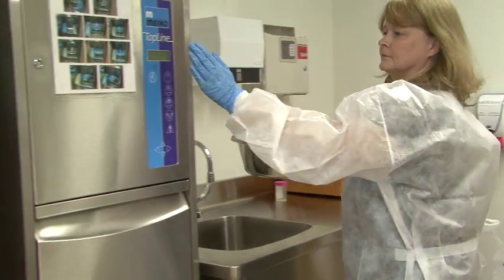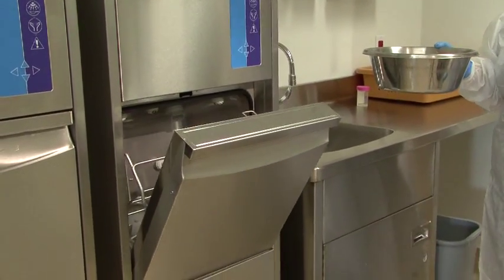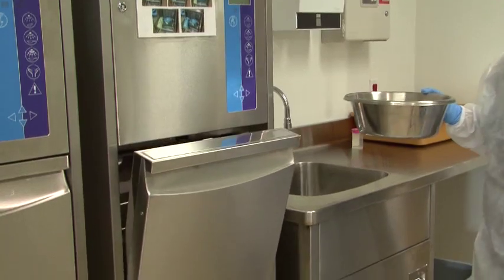Here is how you load the machine. If the door is shut, hold your hand within 2 cm of the infrared sensor on the control panel for 1 second. The door will open. You may also lightly touch the foot pedal if you prefer.